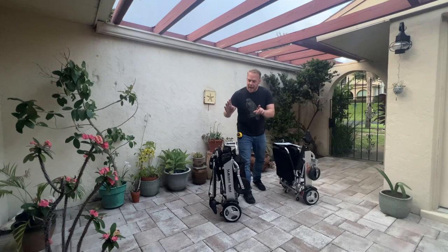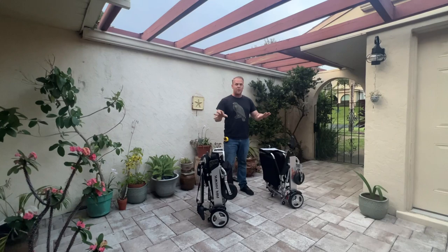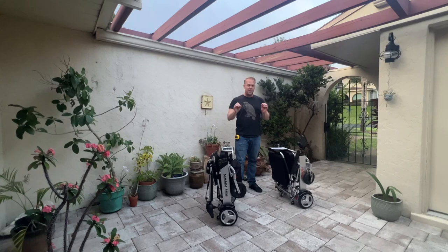Hello, this is Paul from QuickenMobile.com. We have an Air Hawk Power Folding Wheelchair and a Phoenix — brand new in 2022 — Phoenix Power Folding Wheelchair. Both chairs are the 2022 models, and we are going to put both of these chairs to the comparison in this video. So if you're thinking about getting a portable folding chair, whether it's an Air Hawk, a Phoenix, or something else entirely, you'll definitely want to take note of this video.